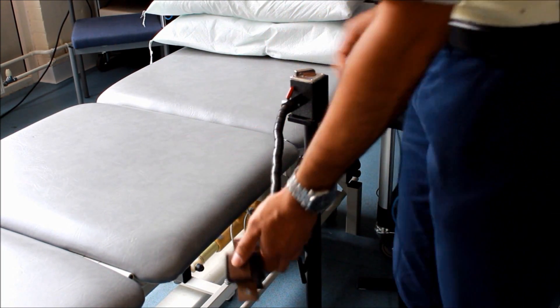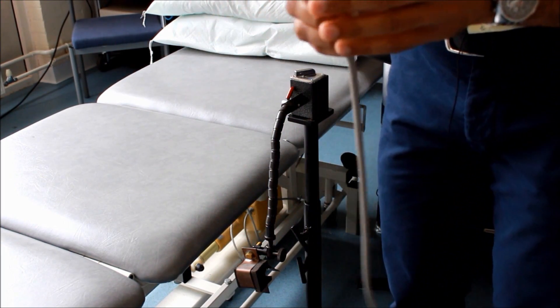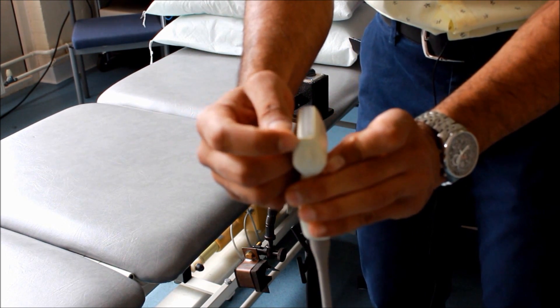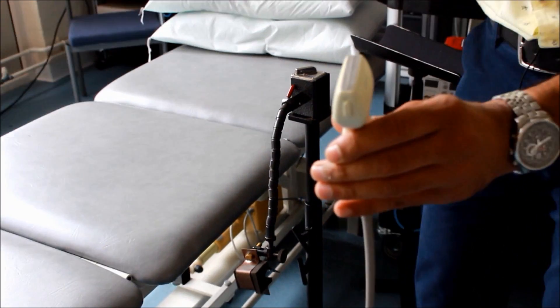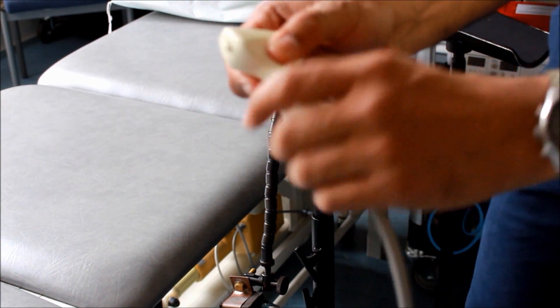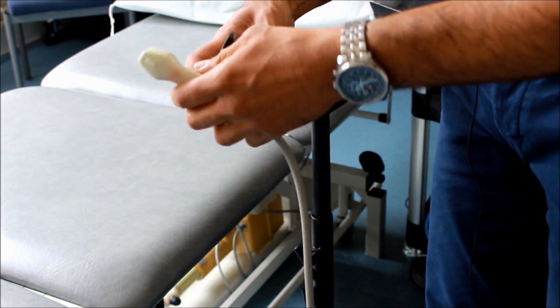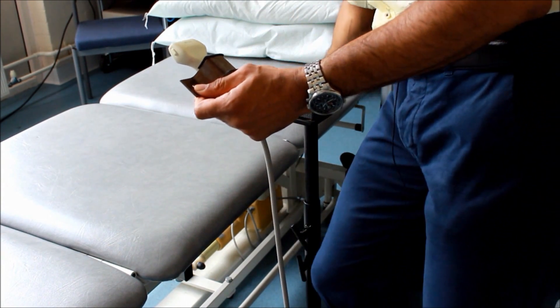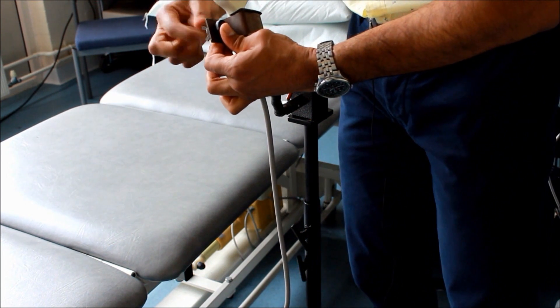We also need to get the ultrasound probe into the actual probe holder. The ultrasound probe contains a very specific orientation marker, which tells us that the image we're getting on the screen actually matches the anatomy as you're doing the image for real. For the purposes of this test, this orientation marker should face towards the participant or patient. So it's very important that when you put this into the probe holder, the orientation of the probe is correct.